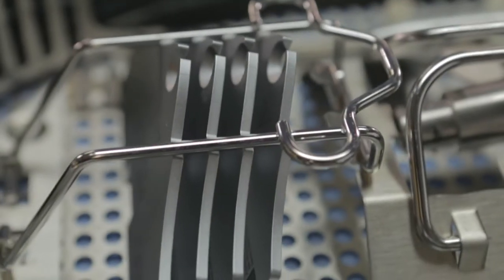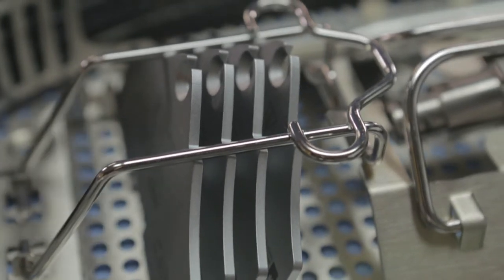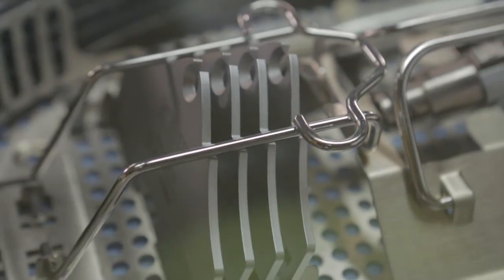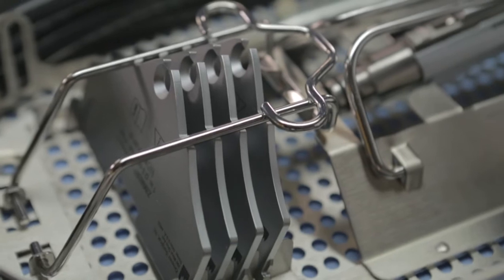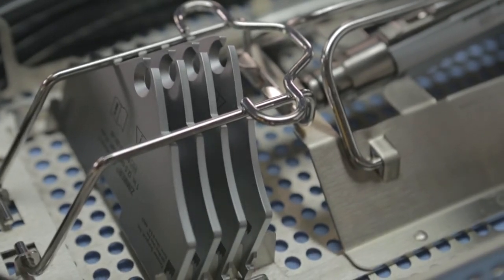Individual graft widths of 1 inch, 2 inches, 3 inches and 4 inches are obtained with width plates. A 1.5 inch width plate is available separately for purchase.